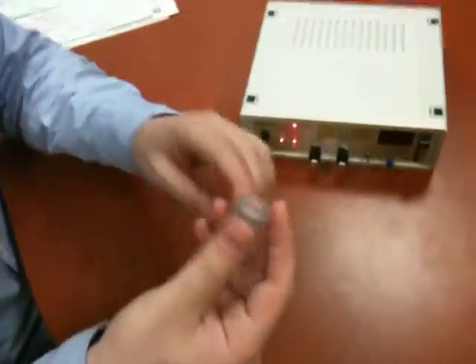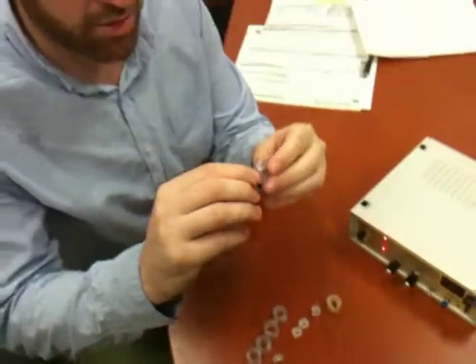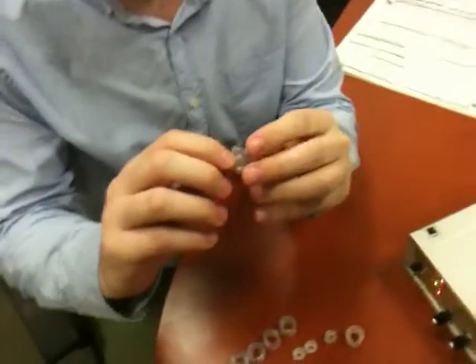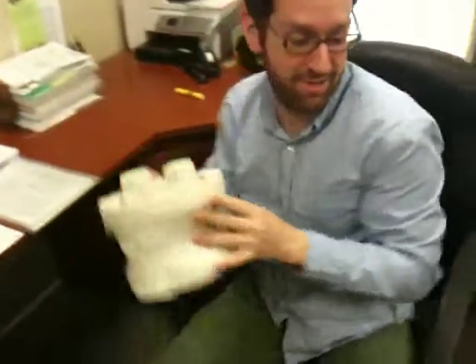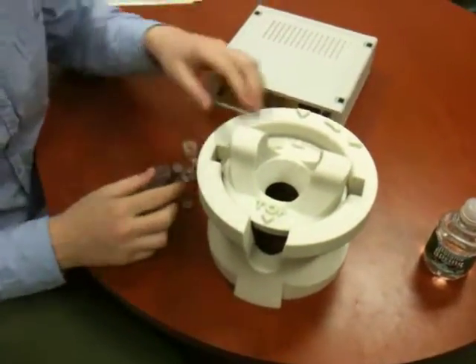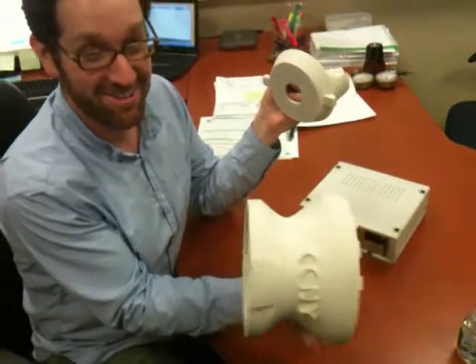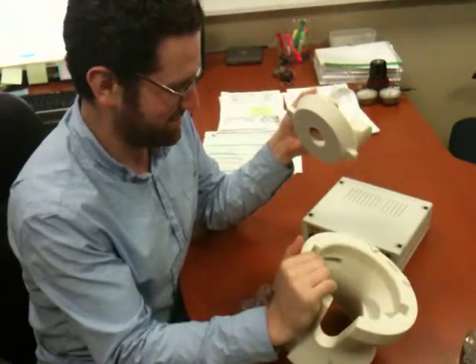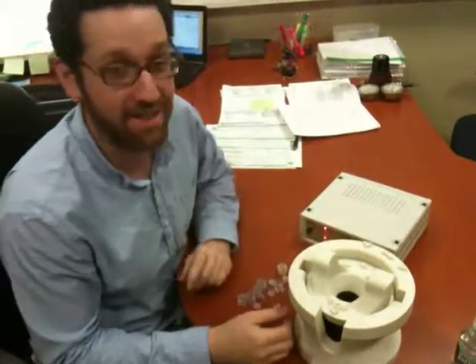These are the electrode insets — the new ones you've seen the video on, with the top lock. That's the basic idea of how these work. And this thing here is what happens when the 3D printer confuses millimeters for inches, so that's the fully working version of that. I hope that clarifies where we're at now.